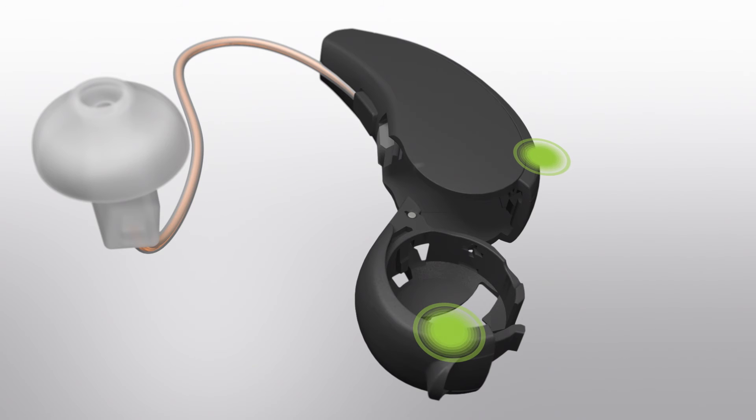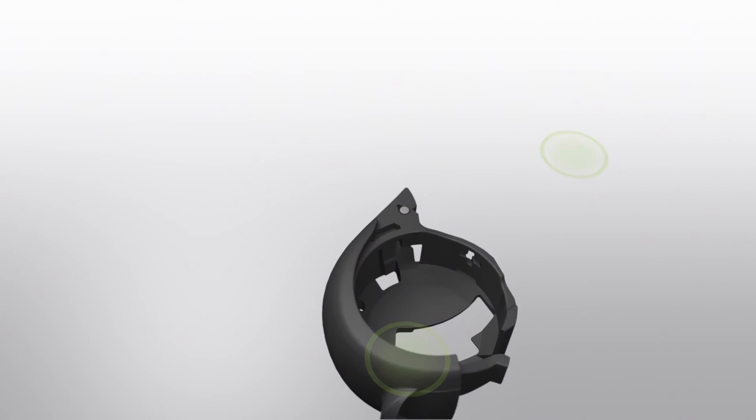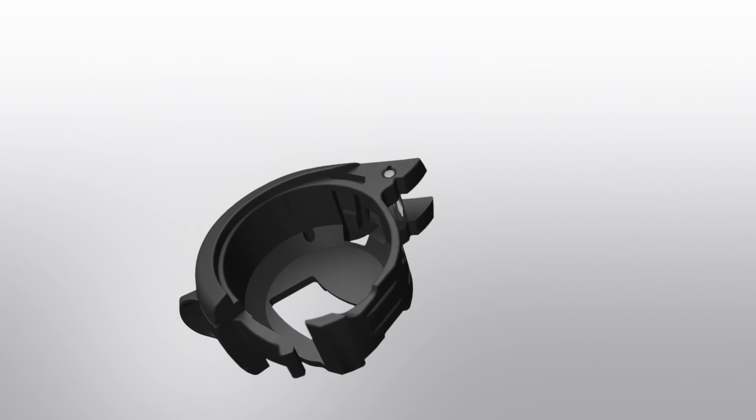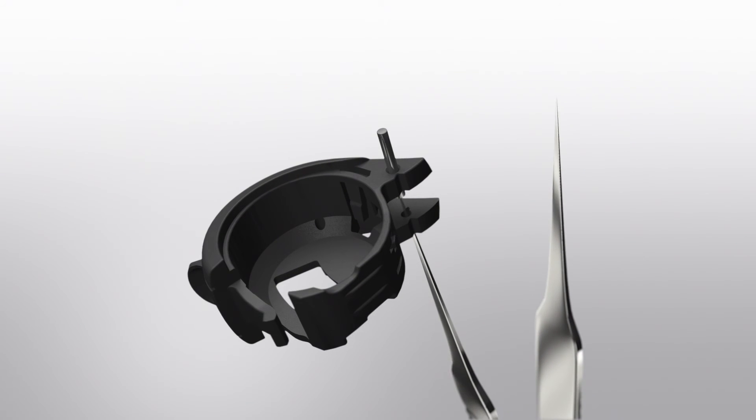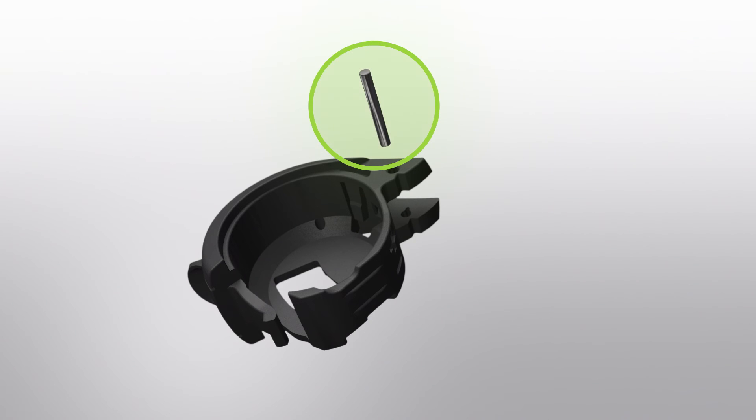Next, use a tool to poke the battery pin through its hinges. You will use this same battery pin for the Z-Power battery module door.